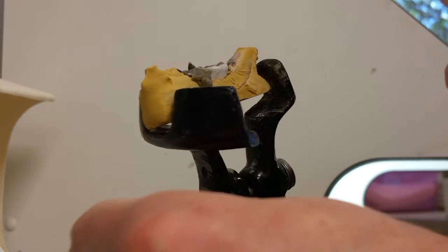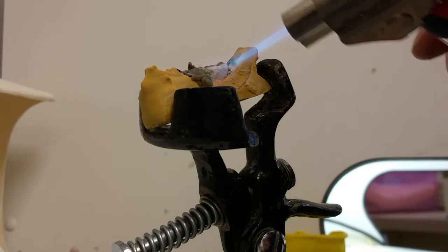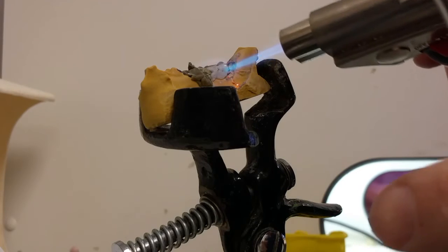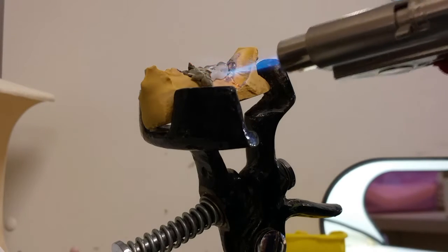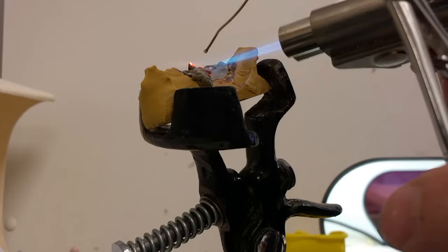Time for the other side. I again apply heat and keep going. Sometimes you'll see the flux turn into a white powder, and then it'll turn into a liquid.